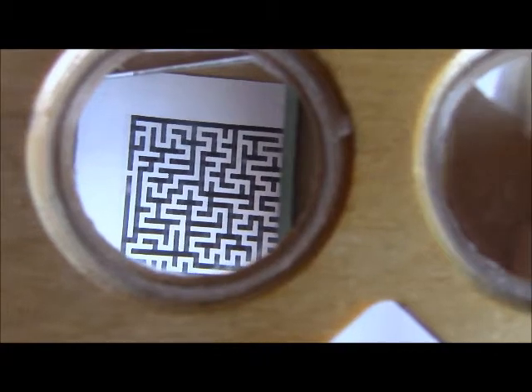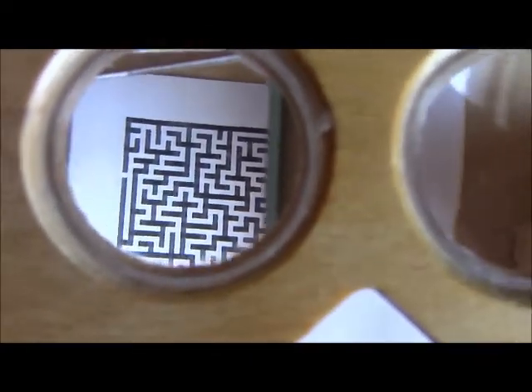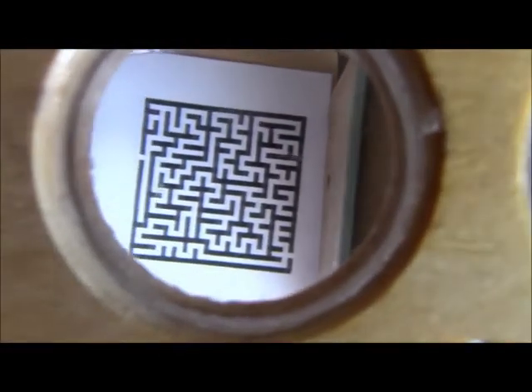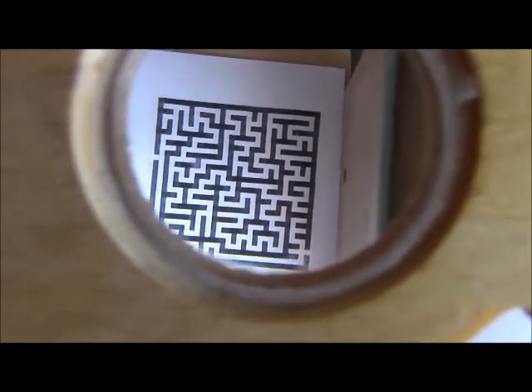losing the relative position of both images. That's why at this point I can solve a maze like that, because you need to look at details and not just fixate in the middle and use peripheral vision.